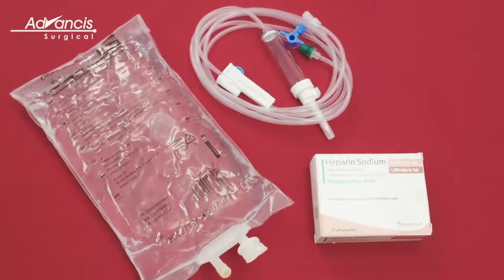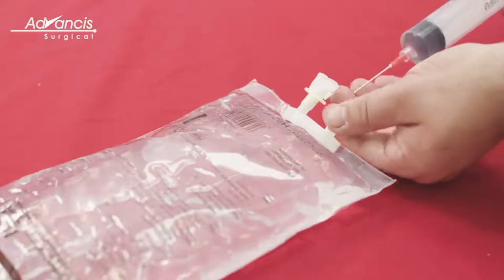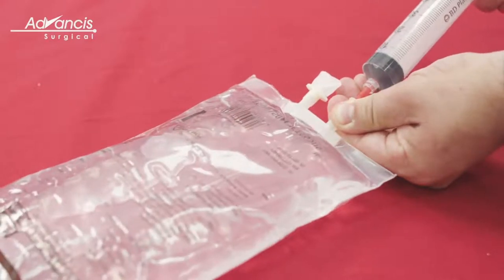Prepare your anticoagulant mixture. This can be 30,000 units of heparin in one liter of normal saline.